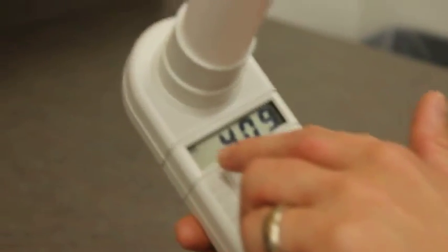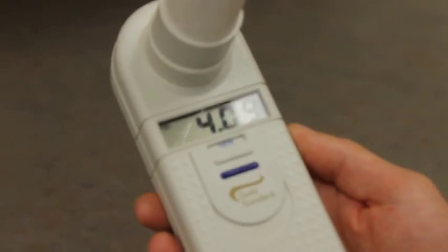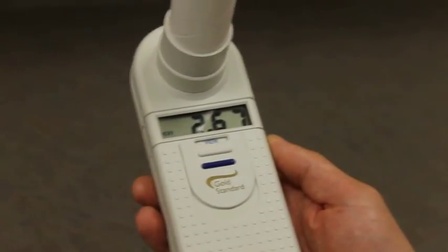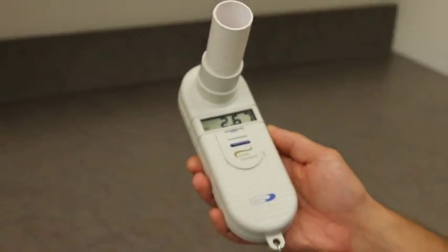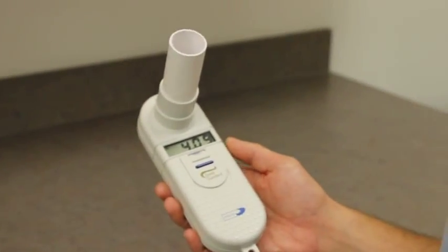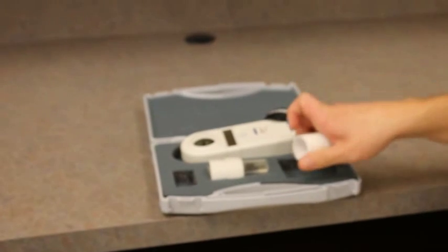So if you go to view, it gives you a forced vital capacity and a forced expiratory volume, and then with these two numbers you can use a variety of calculations to figure out your pulmonary function.